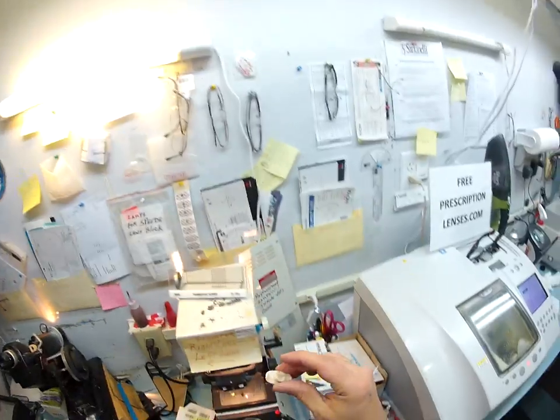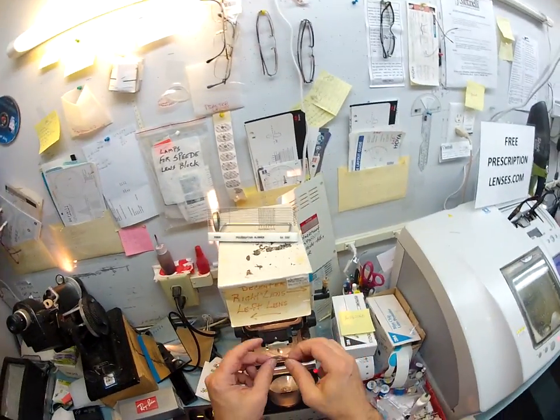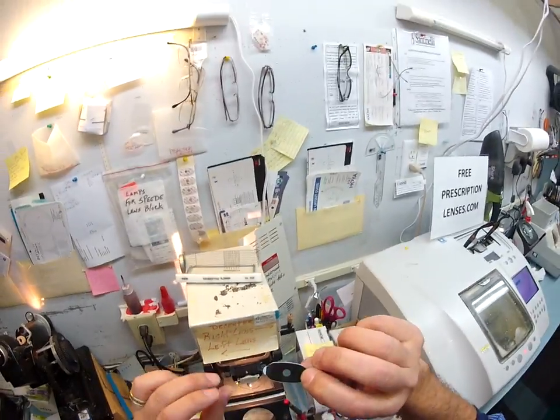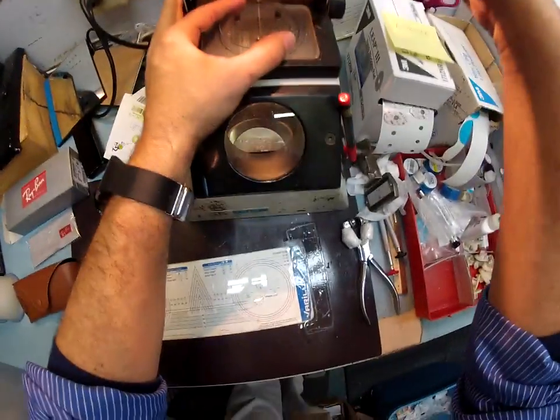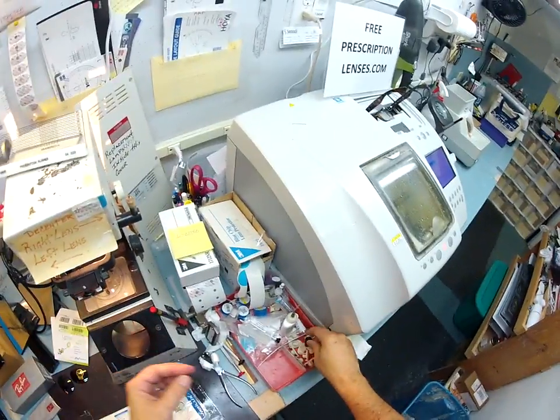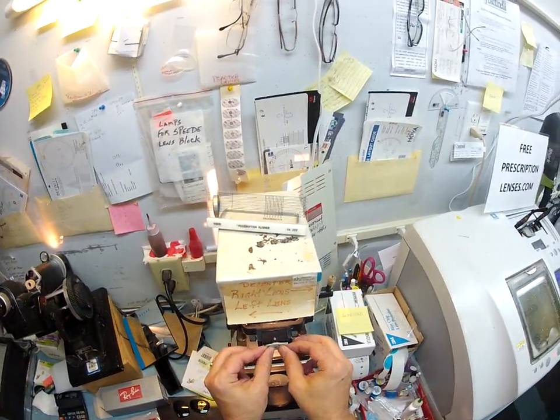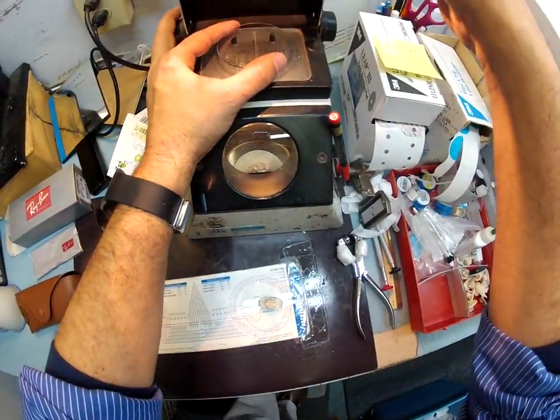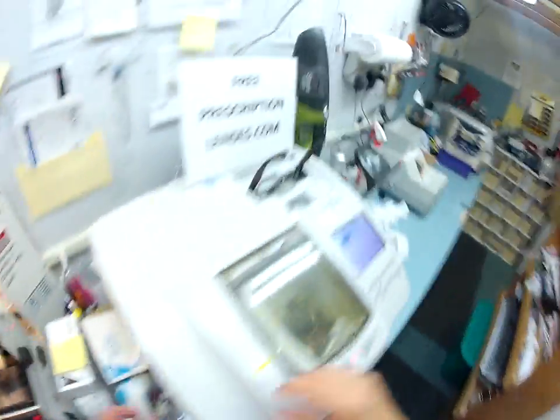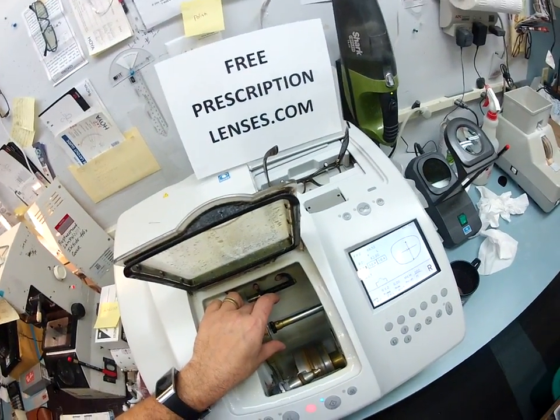I need to put a block on here which will hold it into place while it's cutting. I'm going to use my little double-sided adhesive sticker. The black side is the sticky side — I'm going to stick it against the block, pull off this side, and then stick it down onto your lens. Once I find the optical center, it's like the crosshairs of a scope — get that lined up perfectly. Now let's do your left lens, get that lined up perfectly, and we're good to go.